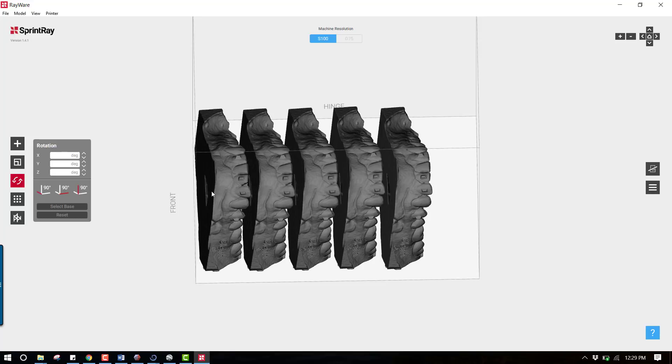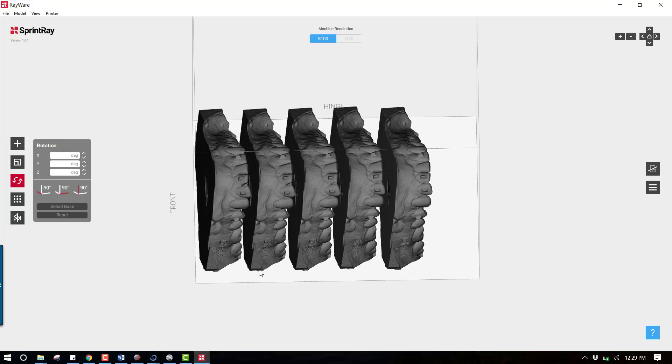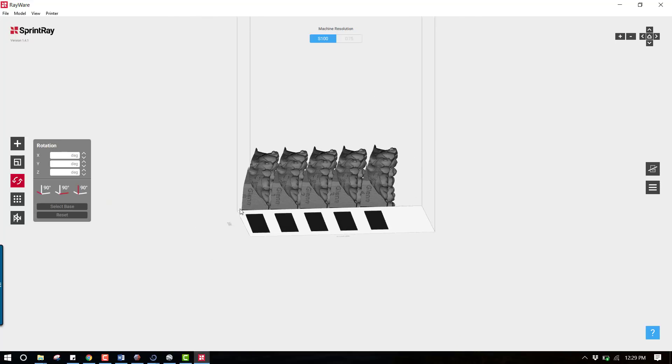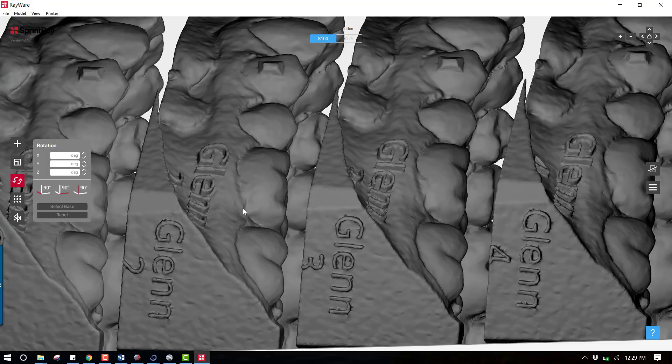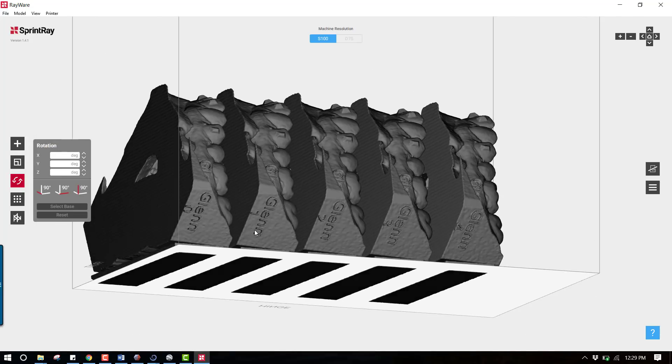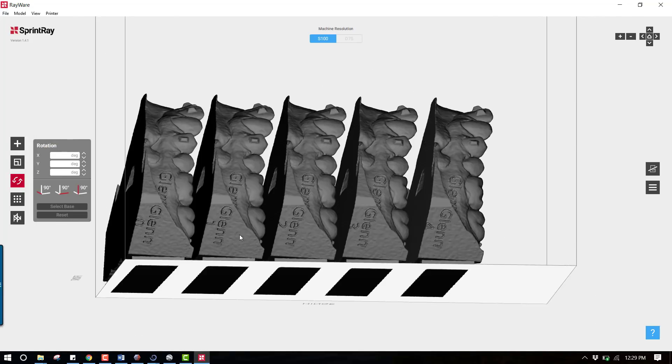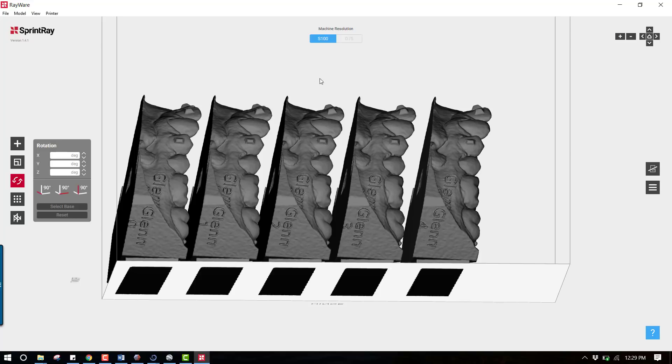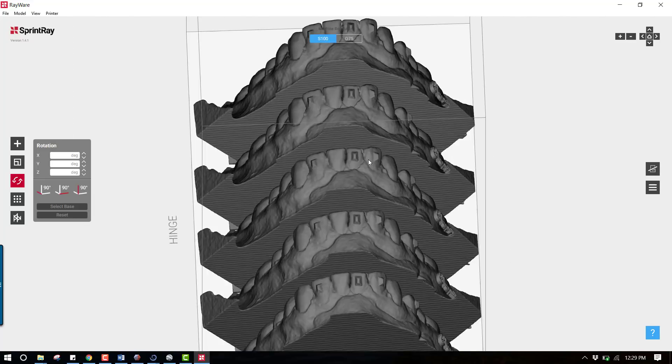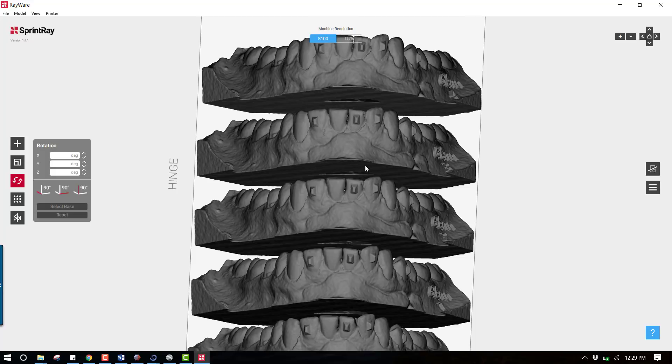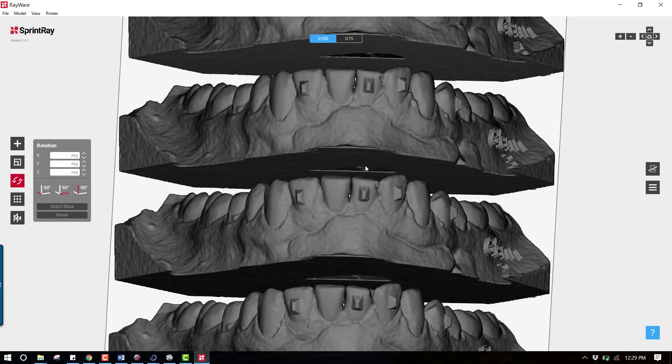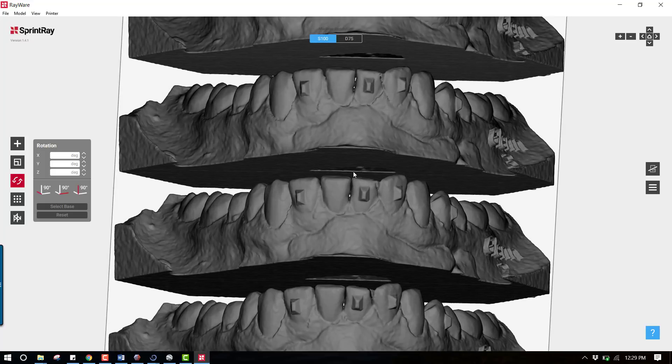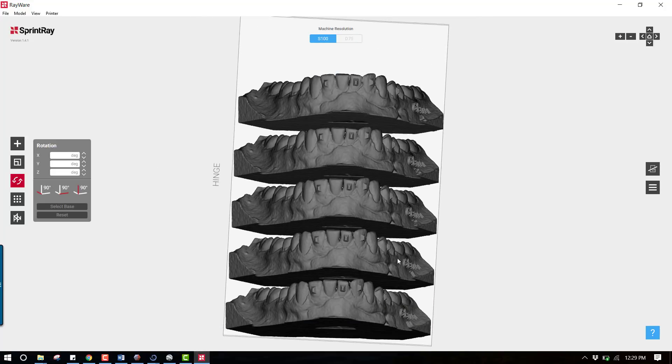This is the SprintRay software and it's very easy to add models. You can see I've already stacked in five models - I find you can get six models on here pretty easily. If you look at the models, the software when you create each of these will number these, so if you print a big batch of models you don't have to worry about losing track of which is which. Goes from zero, one, two, three, four all the way up through that on each model, so you could print these about six models at a time. You notice also the buttons - if you were to look from here to here you see that the teeth are gradually being moved into their proper planned orientation.